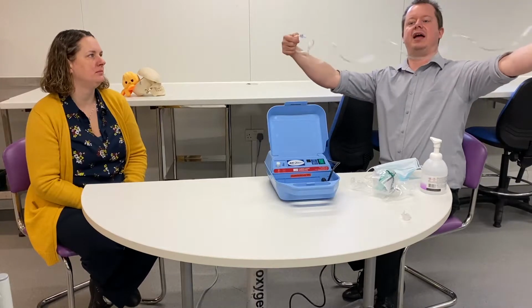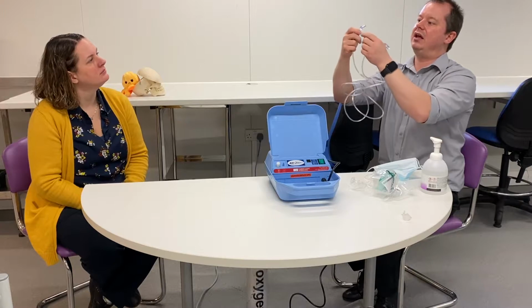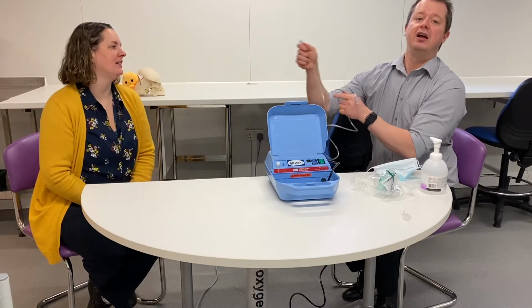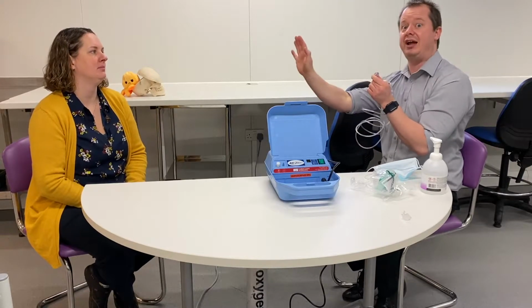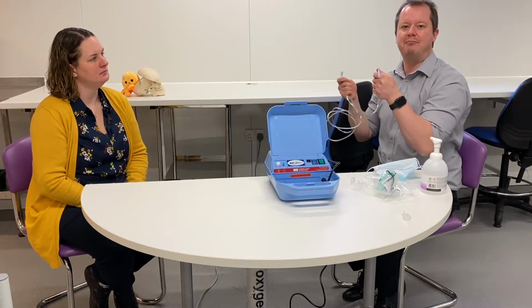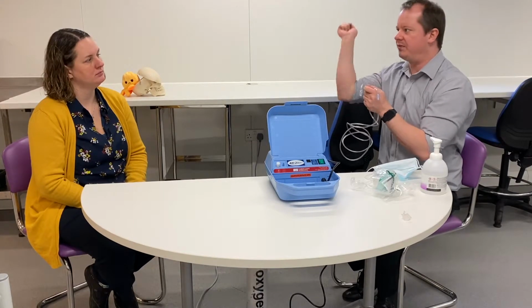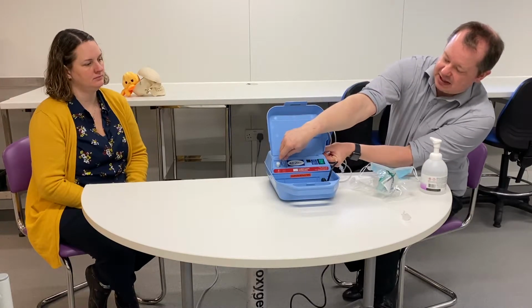This one has a specific tubing that is clear, but inside it, if you look at it very carefully, there's a little star. That star offers some reinforcement down the tube, because you're going to push air into it, and that's going to be resisted at the other end, so it can warm up and become malleable, and it can also expand under that pressure. Because of the reinforcement, that won't happen, and it won't keep popping off the end of the nebulizer. So this is the tubing that you need. Sounds a bit silly that we need specific tubing, but this is the tubing.